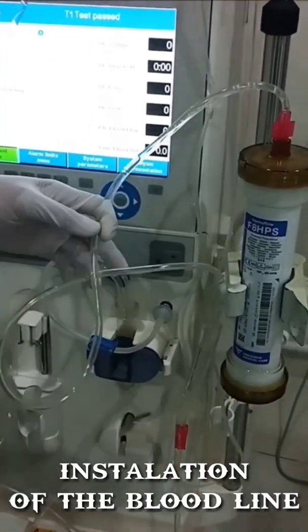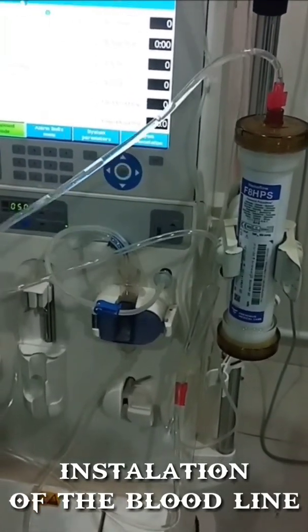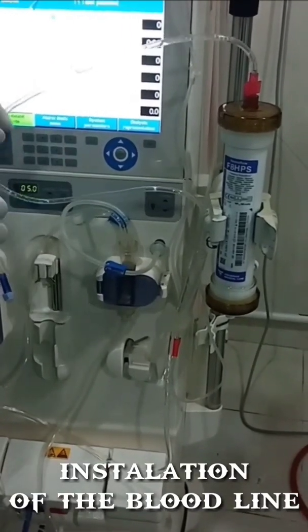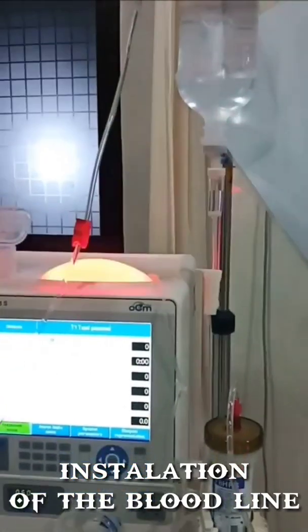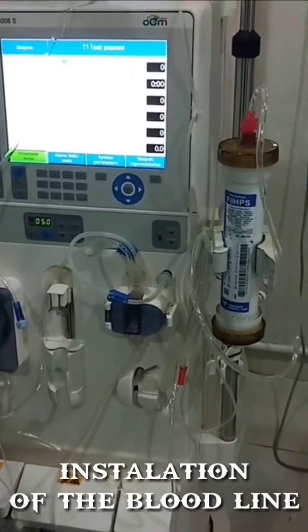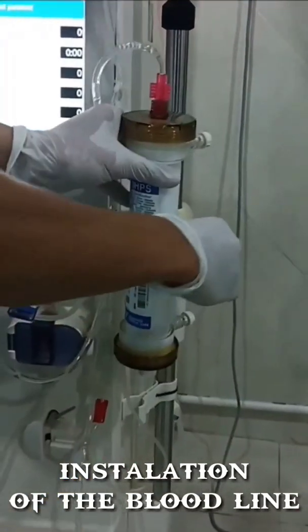The arterial lines hang on the dialysis machine pole. Reverse the dialyzer, connect the venous line to the dialyzer. Connect the end of the infusion set to the blood lines. Open the infusion clamp. Flow the normal saline through the arterial blood lines to the end and then clamp.